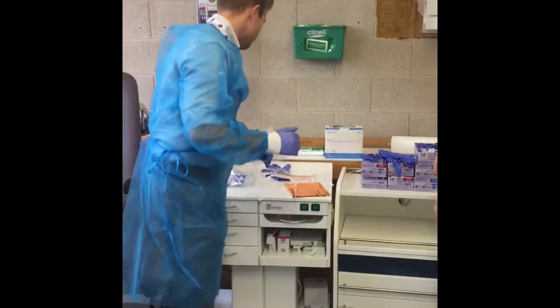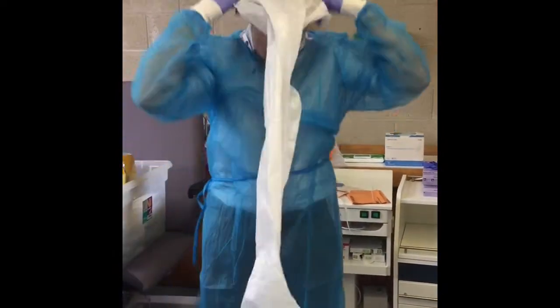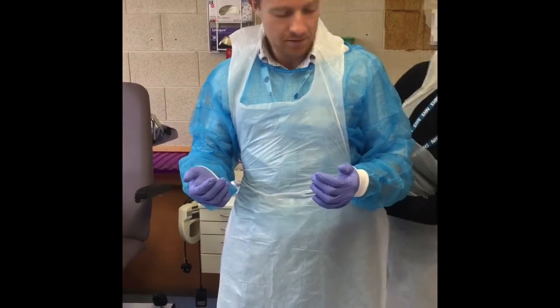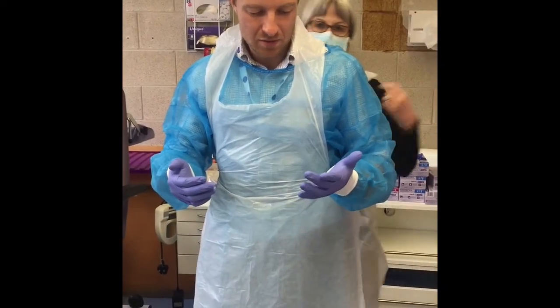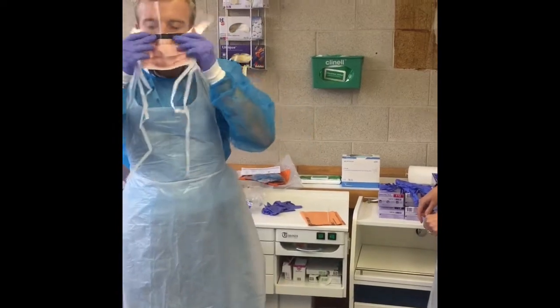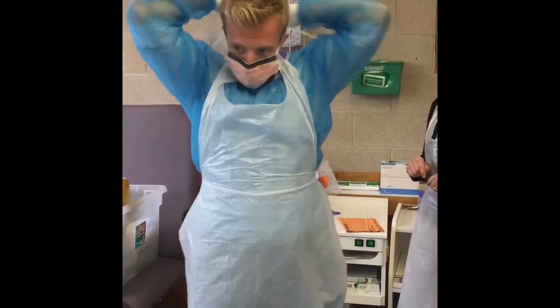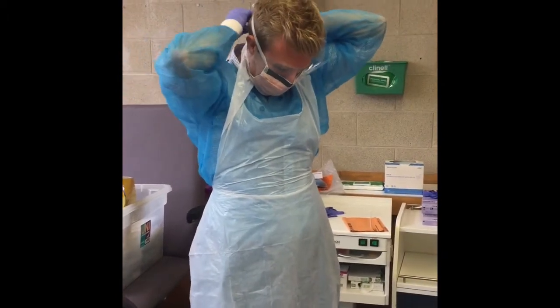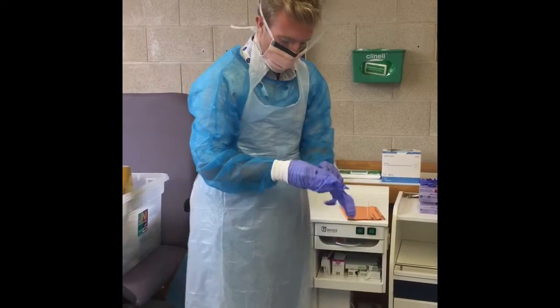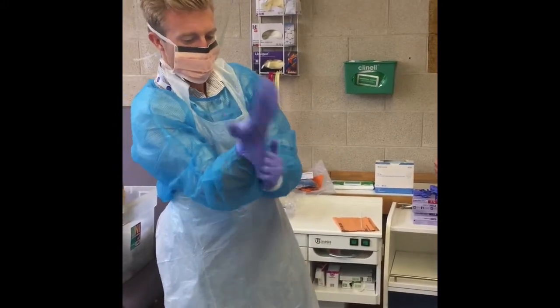So that's as good as these are going to get. Apron and your wire tie. There is a way of tying them — if it's loose you can tie it so it hooks around yeah. Then visor on the outside. You can get your buddy to do this if you want, to do your tying if you're not comfortable doing it.